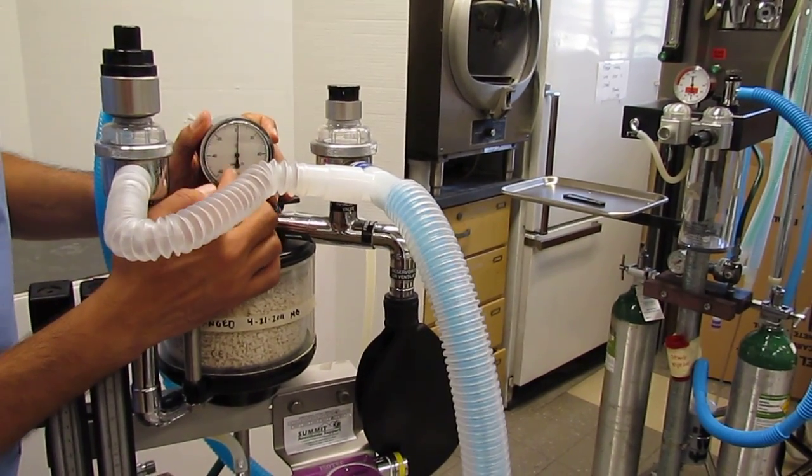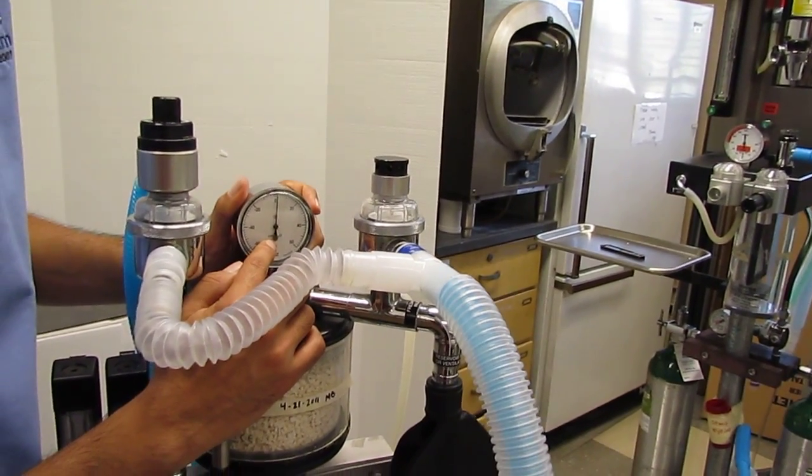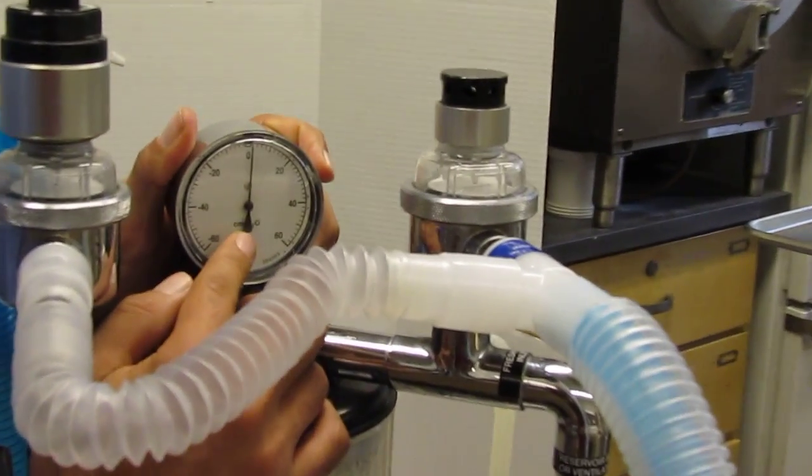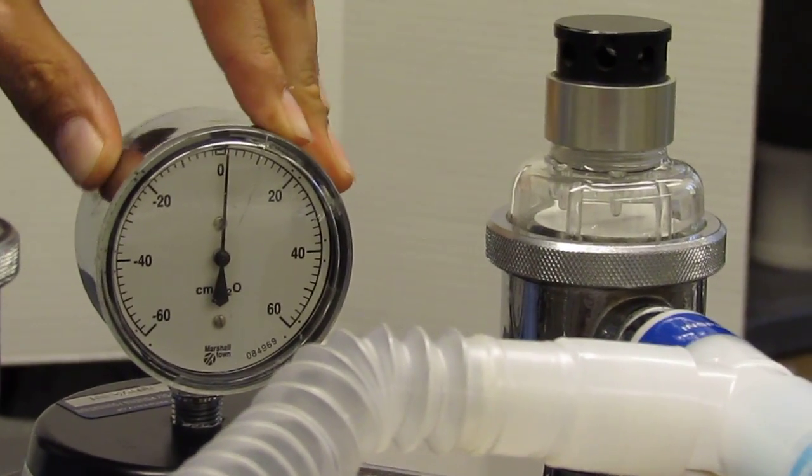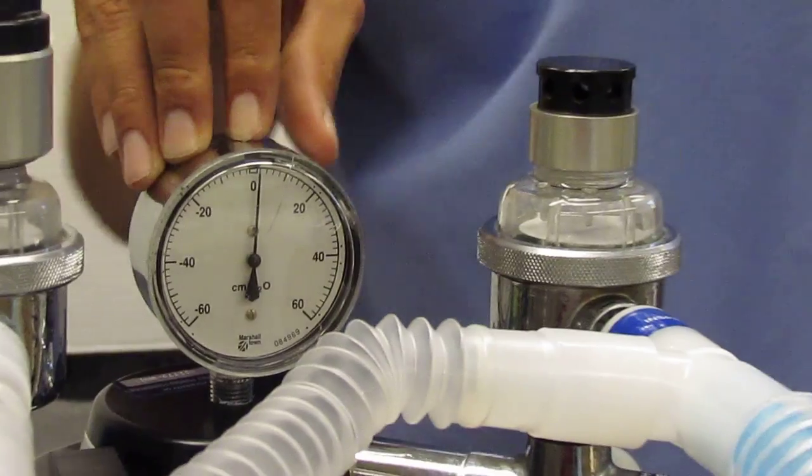You'll notice here you have a manometer that is in centimeters of H2O, centimeters of water. And what that manometer does is it tells you how much pressure is building up or being experienced by the pet.